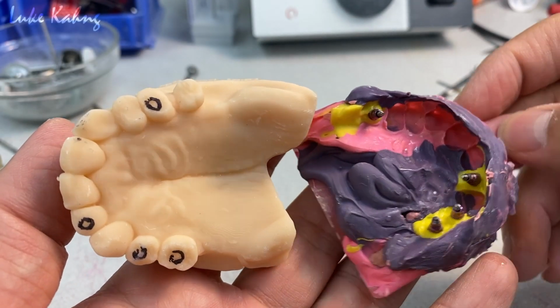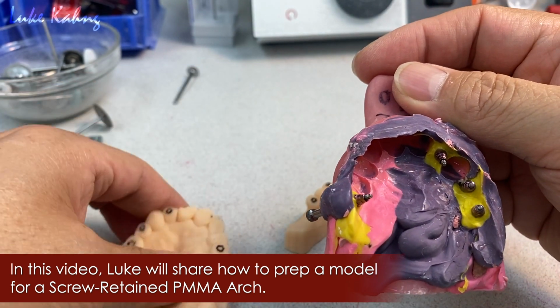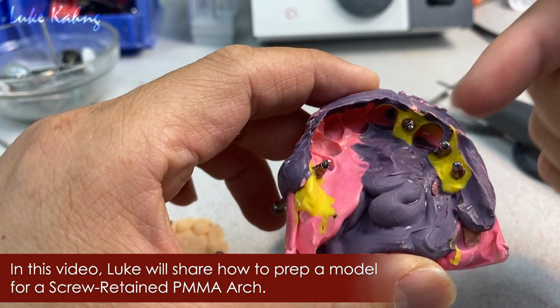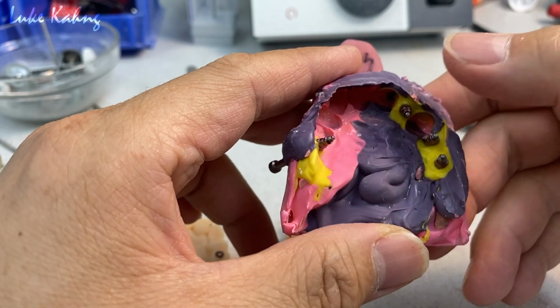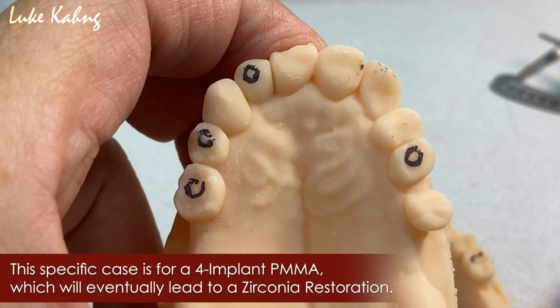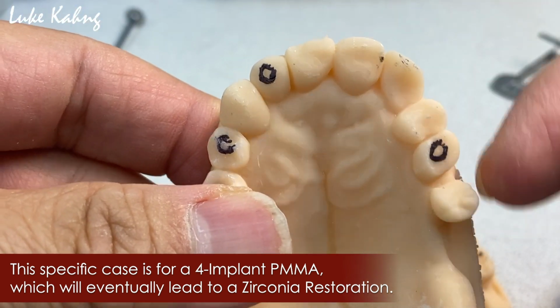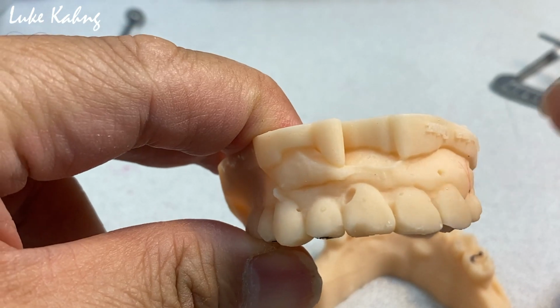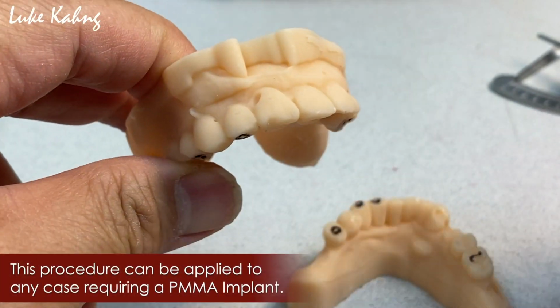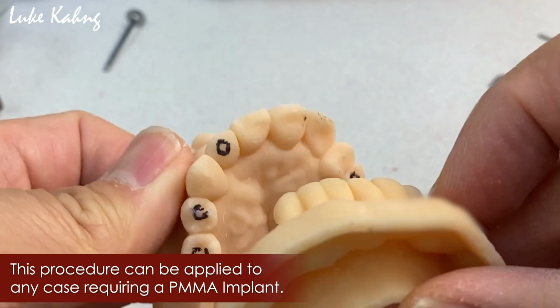Today I would like to discuss how to make good provisional cases. Basically, the doctor took the temporary impression with the 4 implants, and the doctor indicated on the case where the implants are, and this is the existing teeth, which is a great pre-op. That's the great standard format. And then he gave us his lower as well, which is remounted.